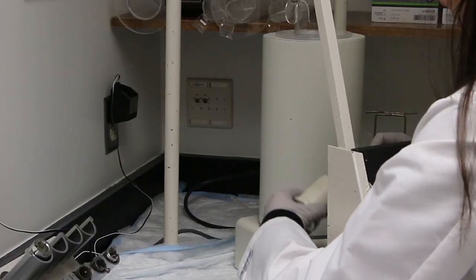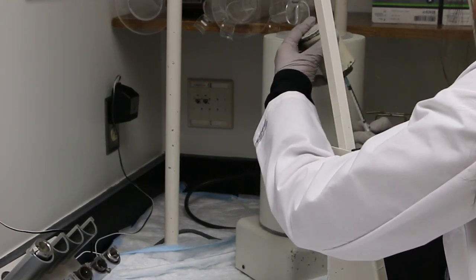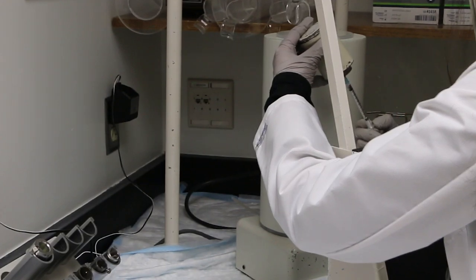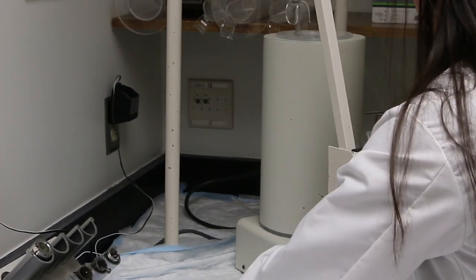Standing behind the L-block and with the vial secured in the lead calibration receptacle, invert both so that the liquid flows to the bottom of the vial. Insert the needle into the vial and draw until you can see just a little liquid filling the syringe.